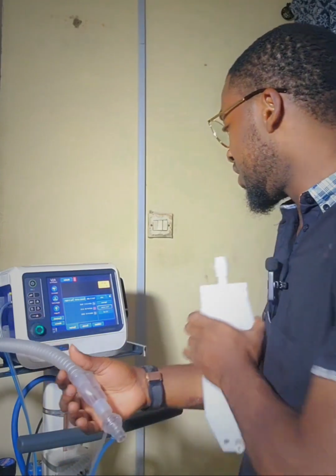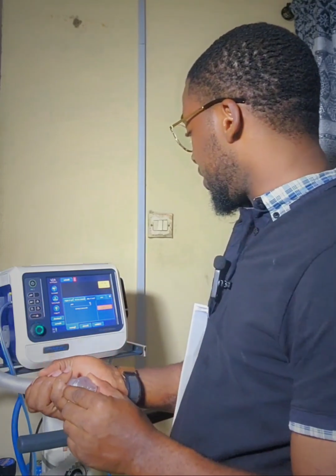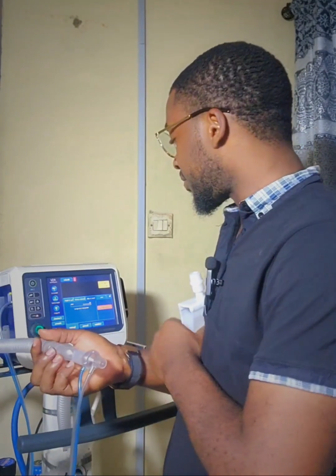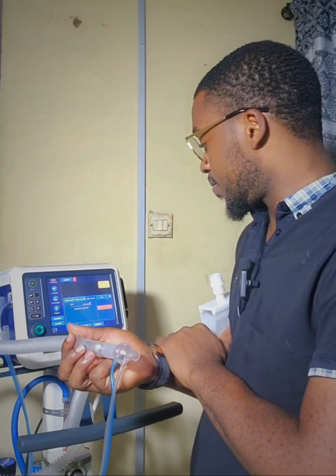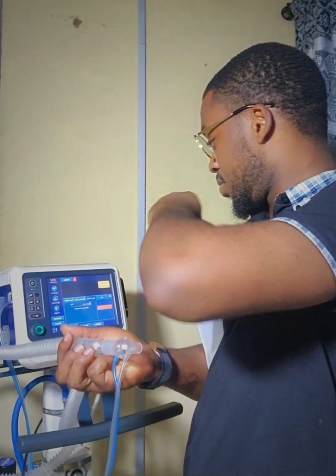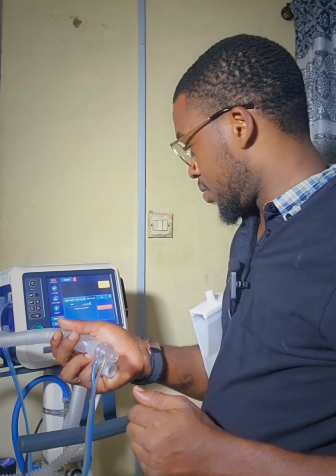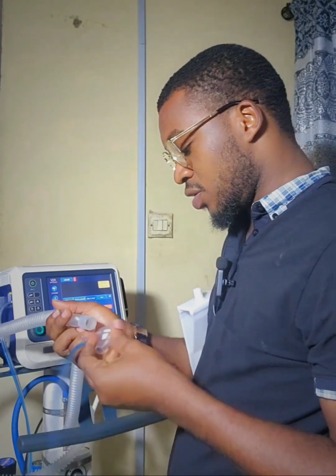Oh, it didn't pass. So let's do that again. There was an error somewhere. To disconnect, it's going to turn. Maneuver in process. Go ahead and turn.